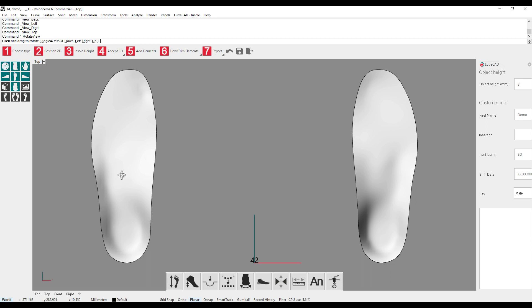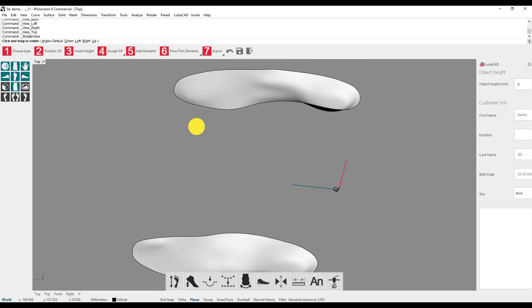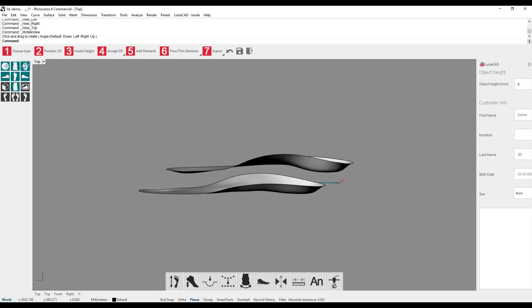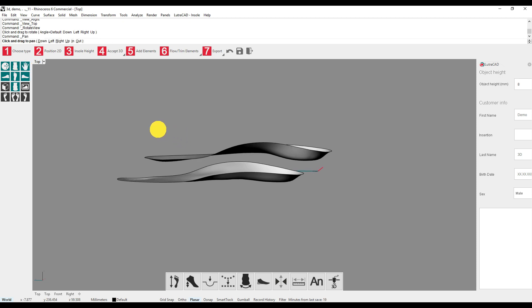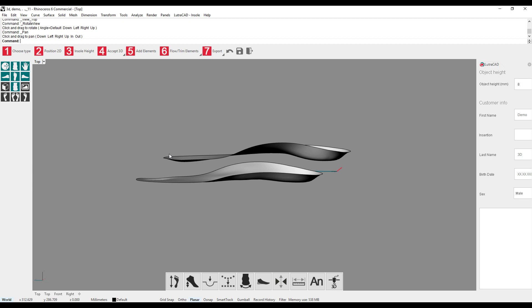If you want to see a different angle, we can use the free rotation tool. To pan, we can use the pan tool and move around. This will slide the document and maintain the same view orientation and zoom.